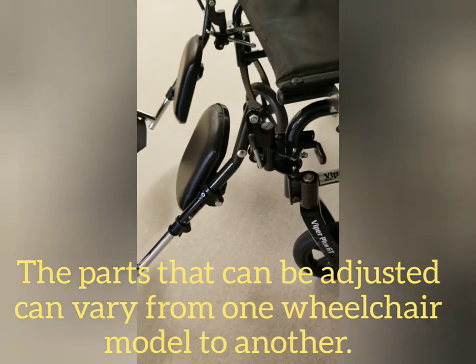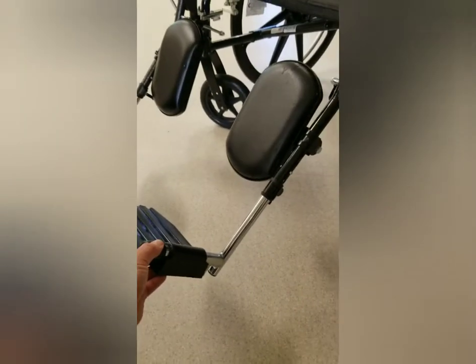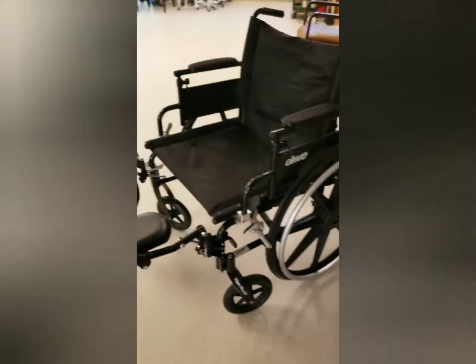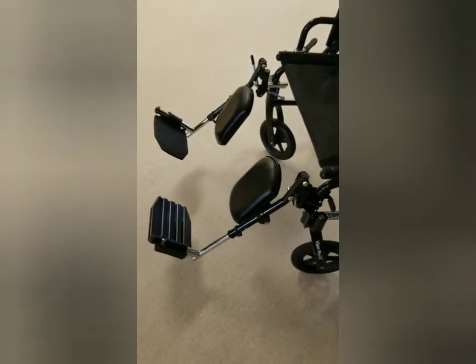Some leg rests elevate and some do not — these are elevating leg rests. There's a little bar here that unlocks it, and to elevate you simply raise it up. That helps somebody who needs their leg elevated for circulation or just for comfort, and it also helps with the positioning of the person. To lower the leg rest, you go to that same lever — it takes two hands, but when you click it the leg rest swings down. The length of the leg rest can also be adjusted using these push-button pins, which let you bring the leg further out or further in depending on leg length.